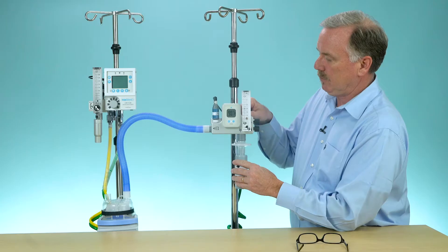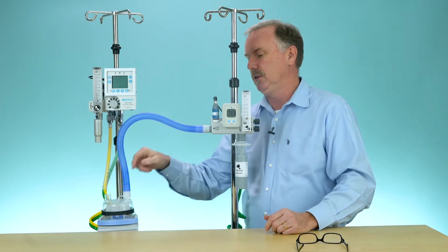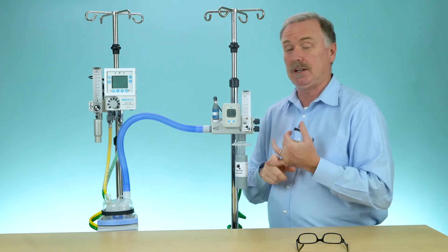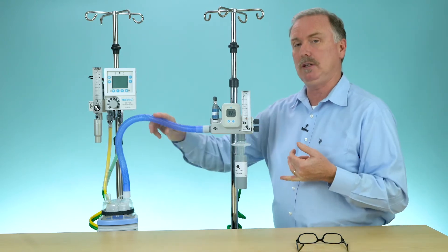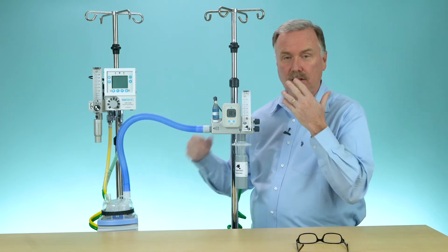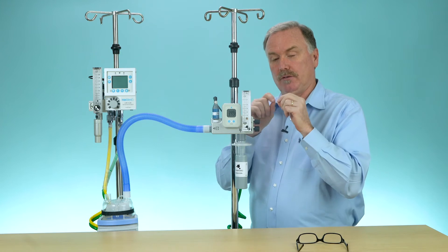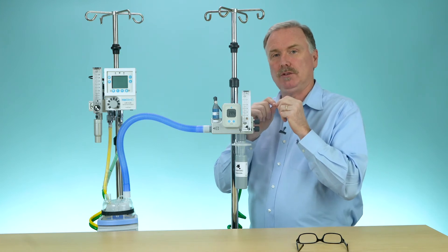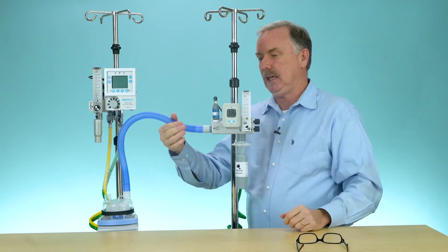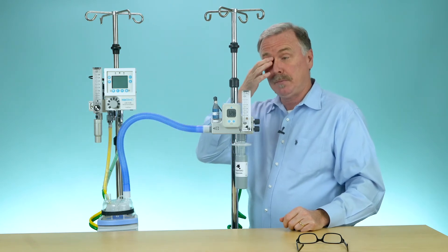Think of some things that would cause resistance between the Max Venturi and the patient: condensate, mobile condensate in your tubing, a blanket covering the cannula, the cannula becoming dislodged, using the wrong cannula. A very small bore cannula will cause all that resistance. A kink or getting caught in the bed rail will also cause that fluctuation.